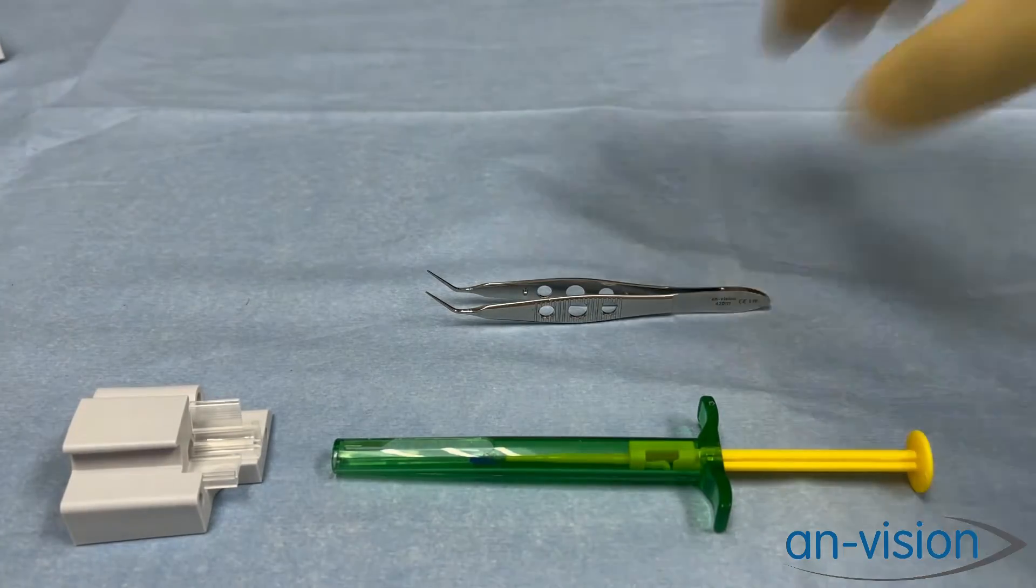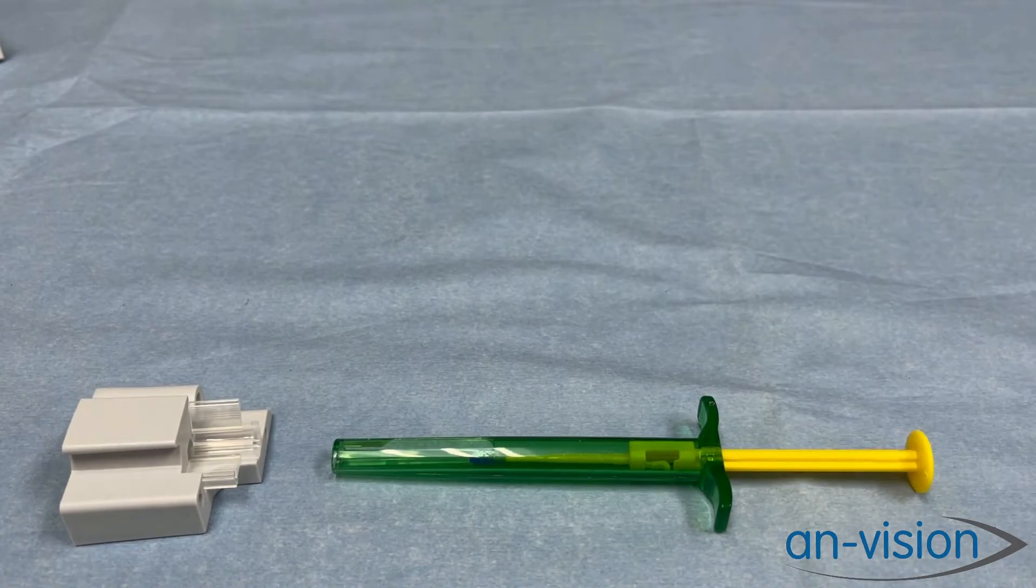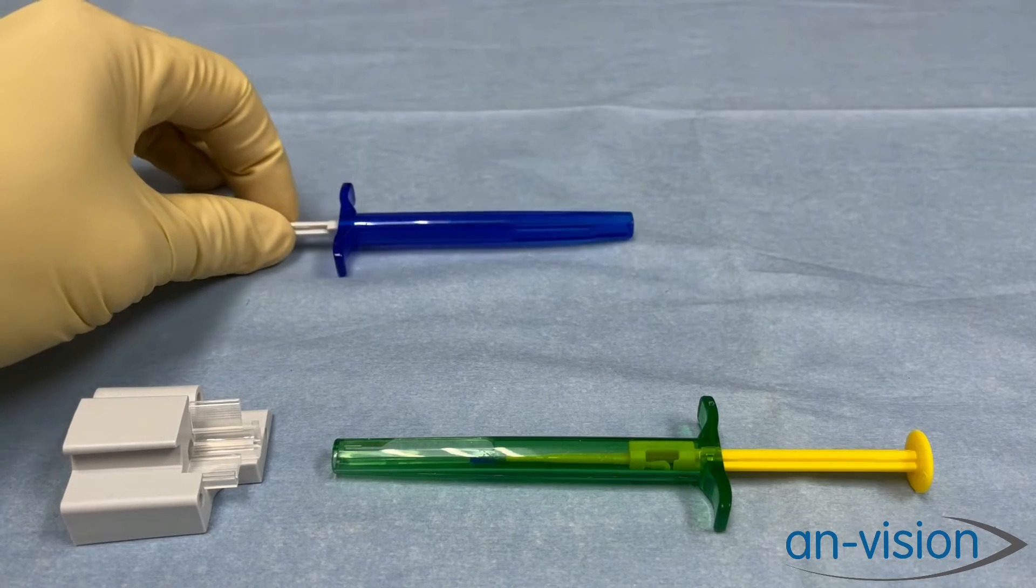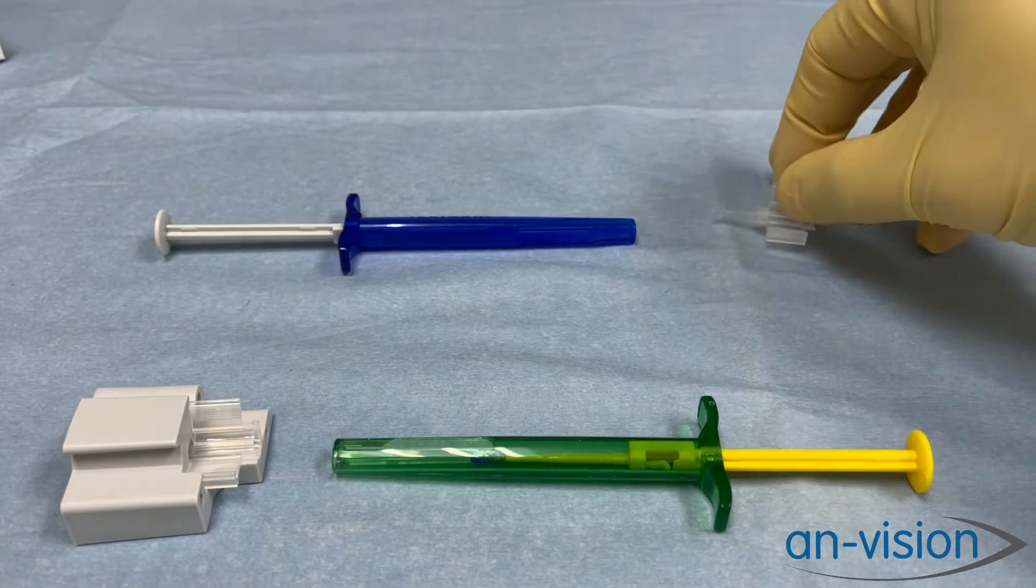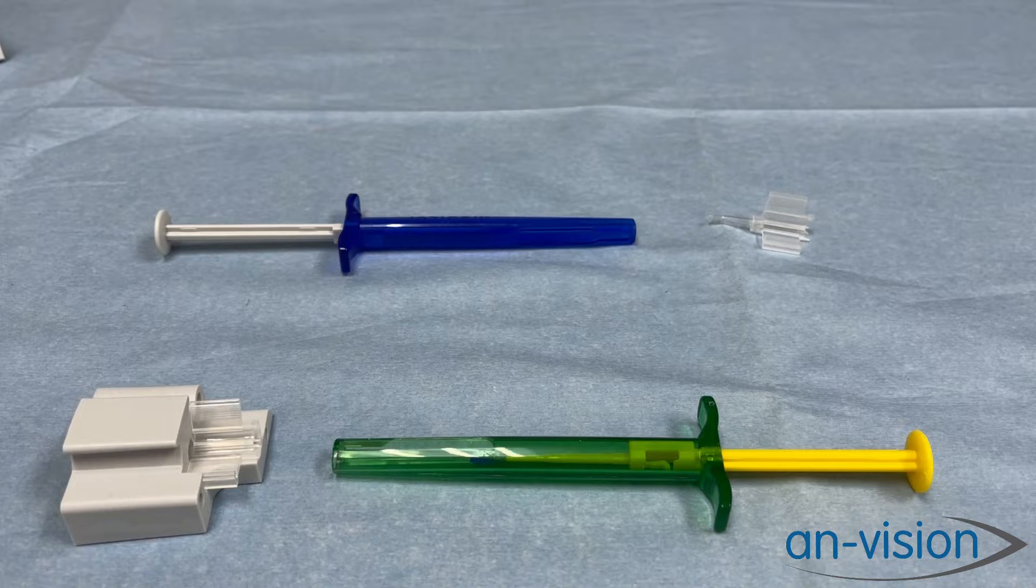Before I begin, I would like to point out the differences in design of the old Naviject Injector and the new Viscoject Easy.